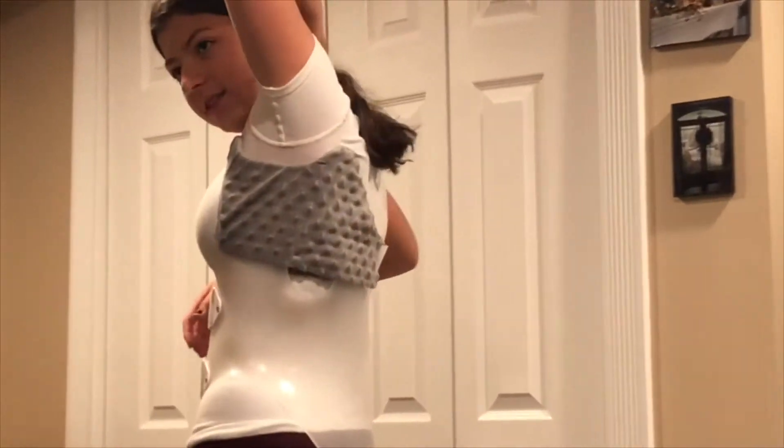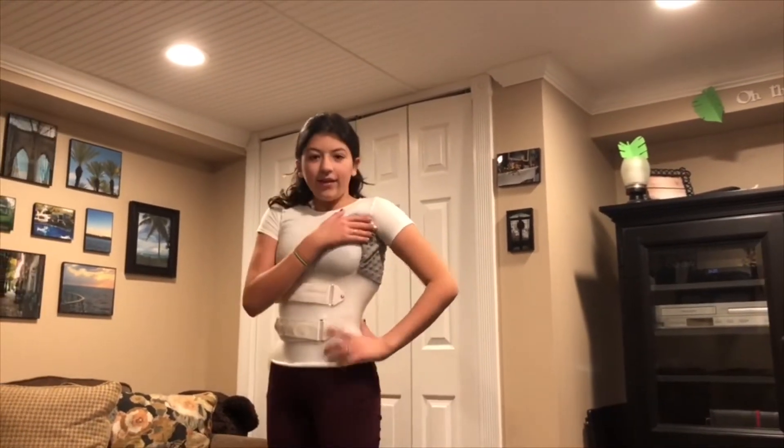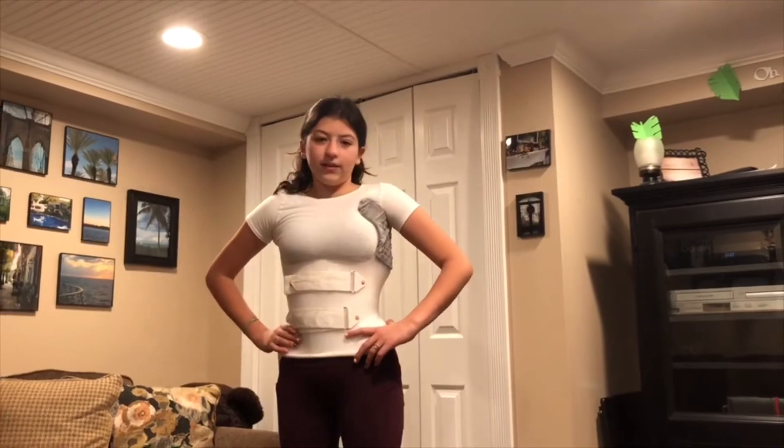This is the thing that we just made. I don't really know what to call it, but as you can see, it definitely does not feel as bad as it did. It will always feel a bit uncomfortable, but again like my last video, I'm powering through it — and all these girls power through it.